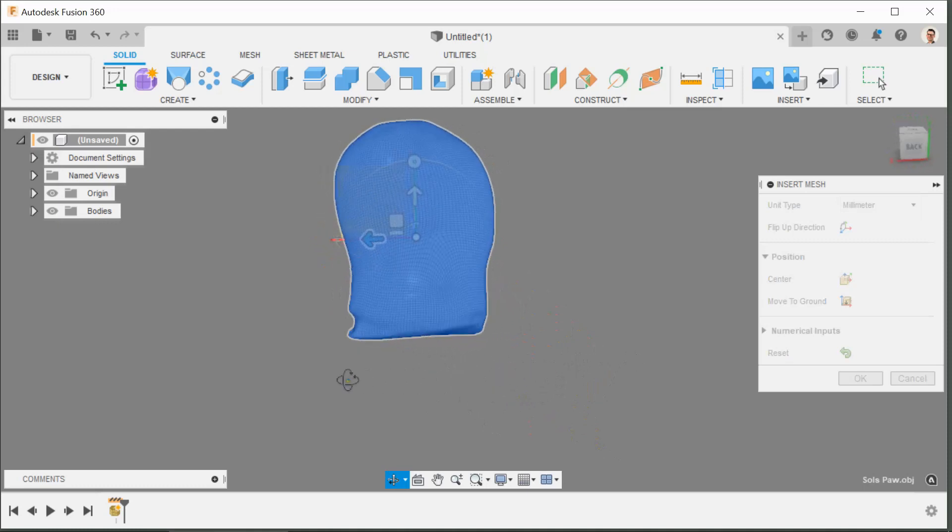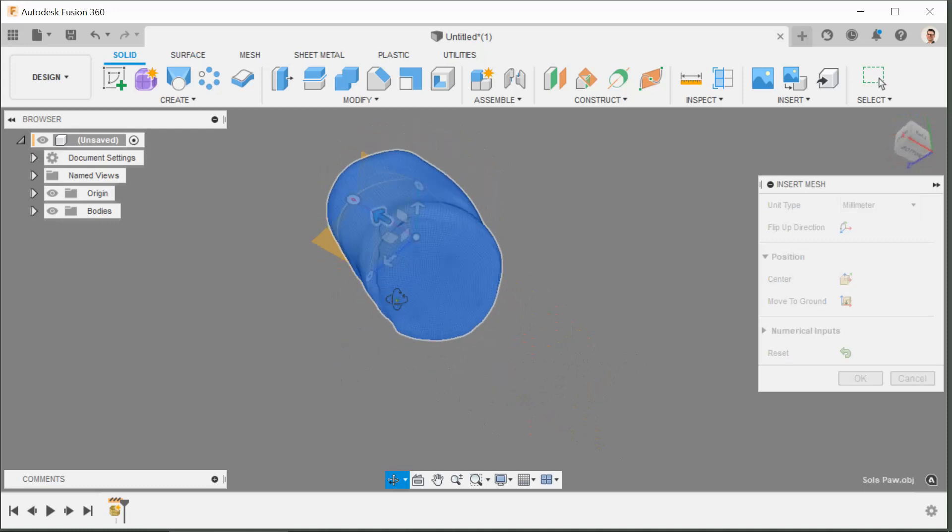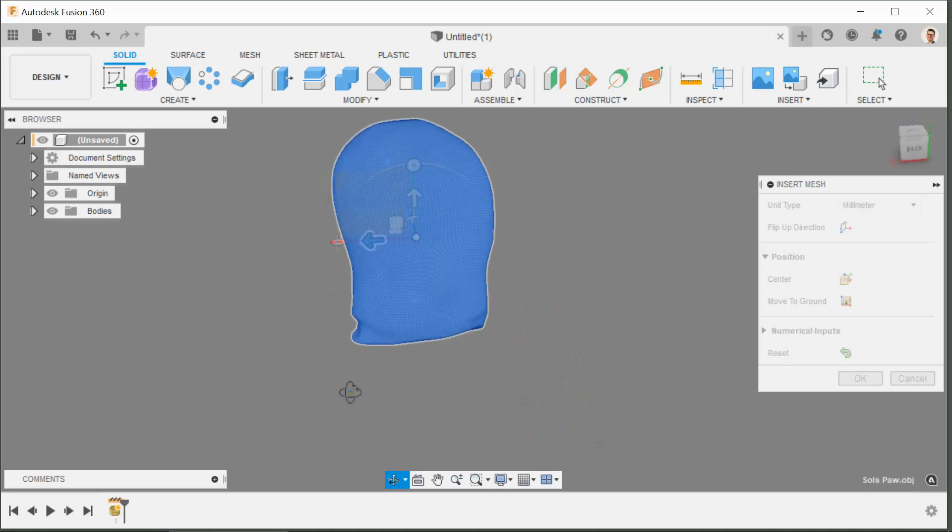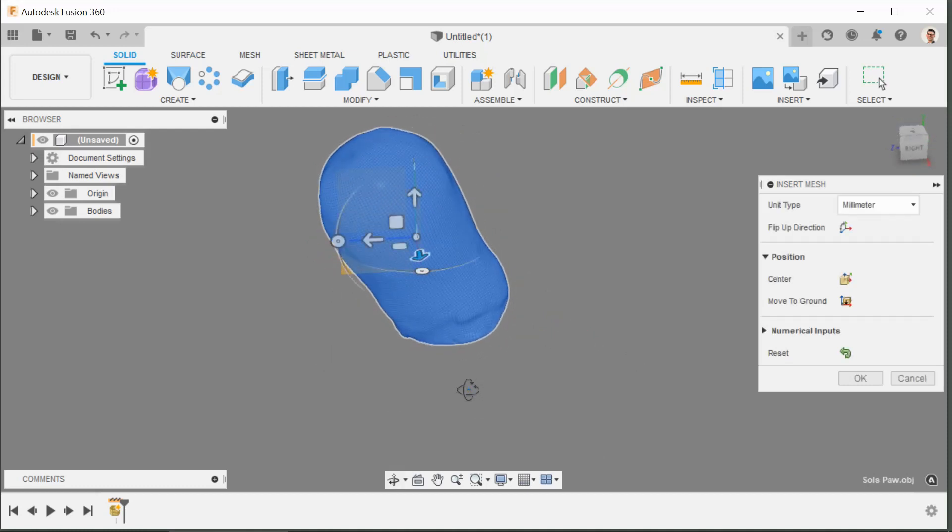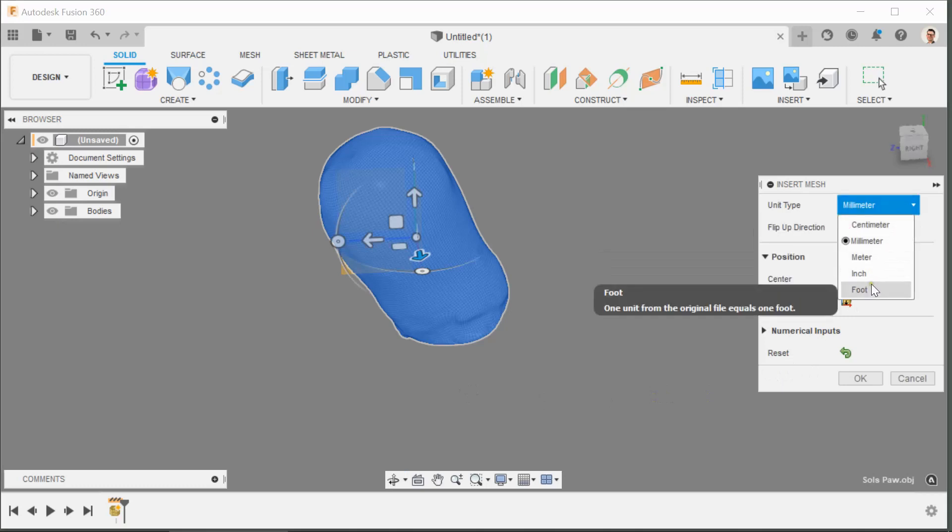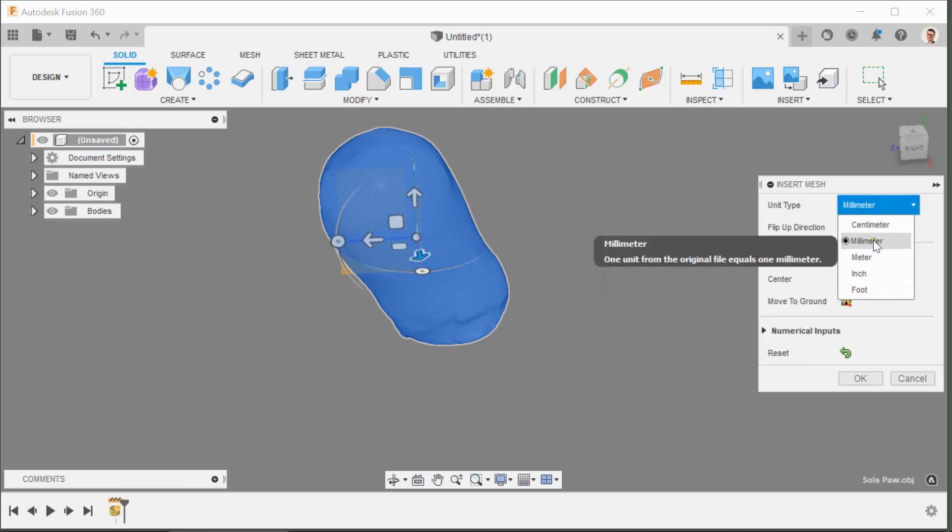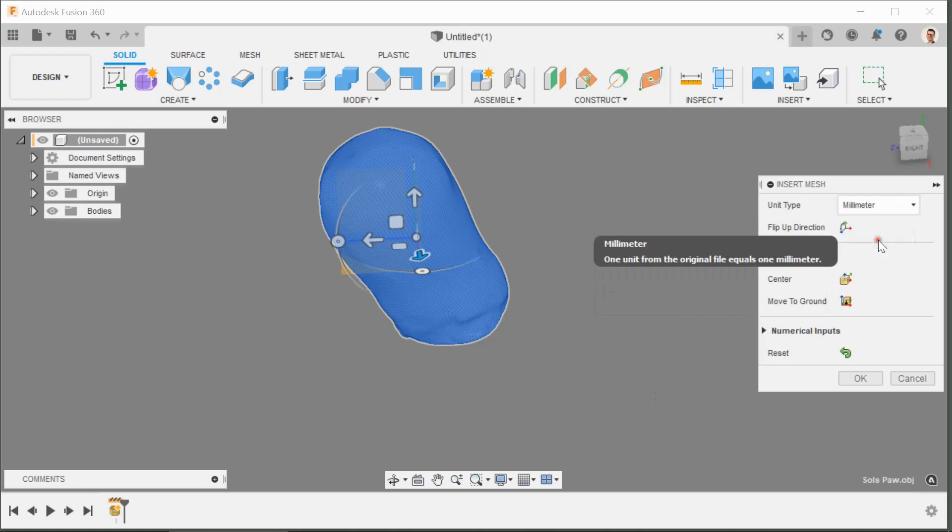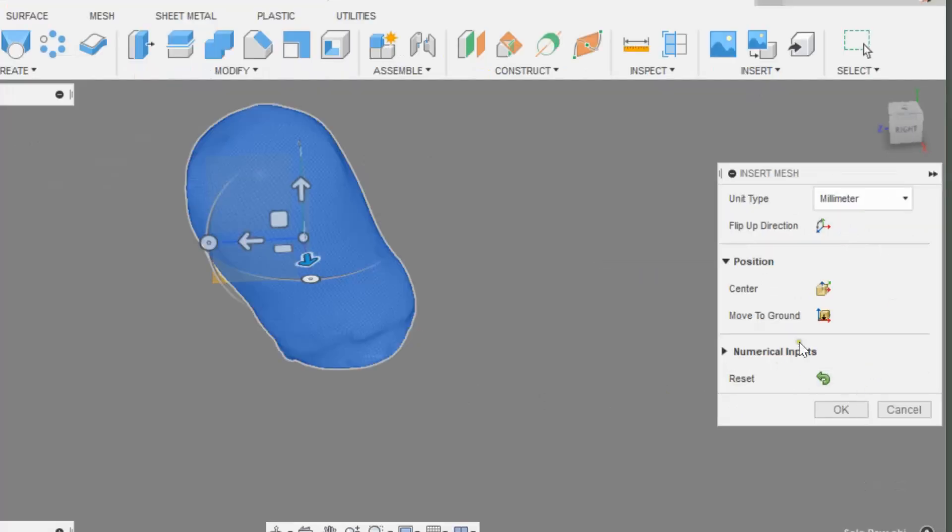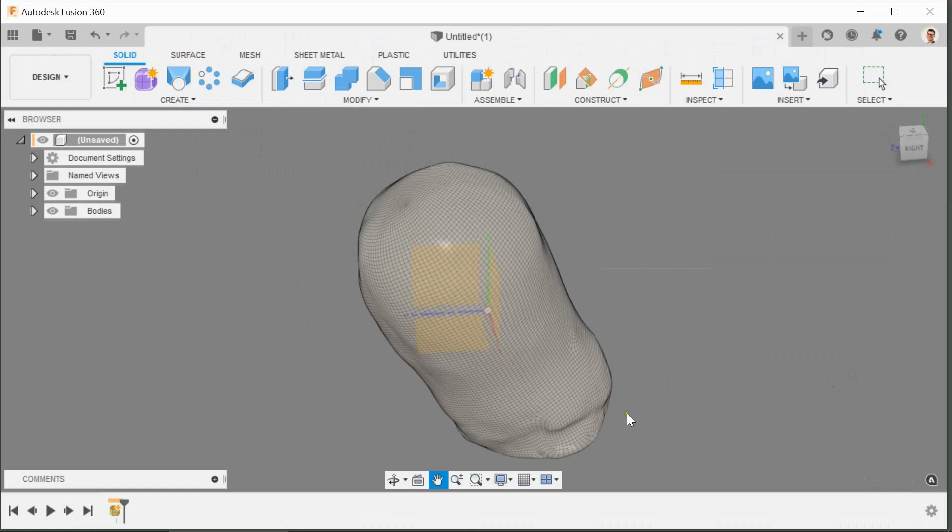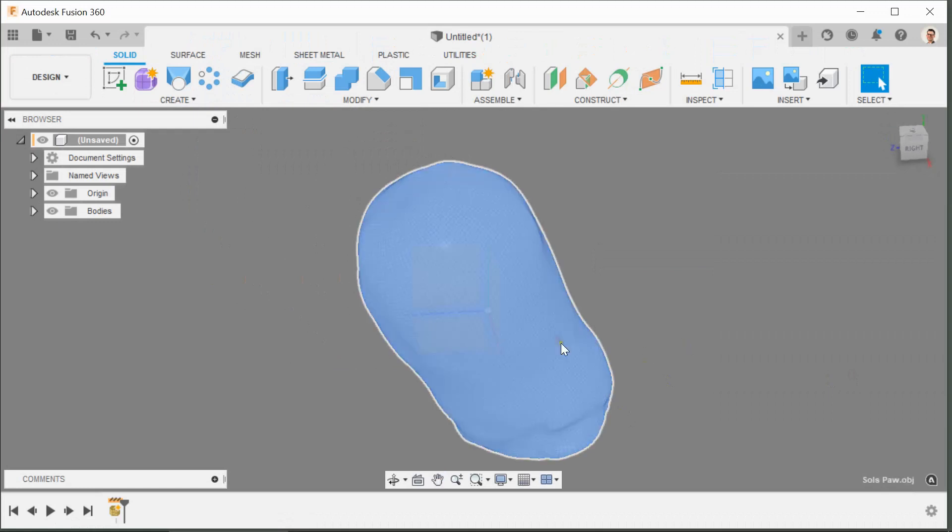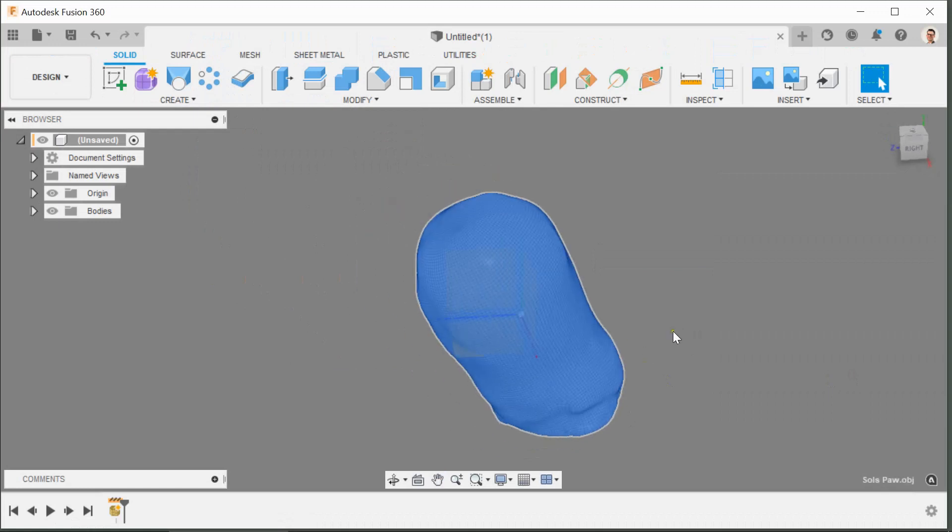It's a featureless object and we have to align it so it's going to be quite fun, bear with me. It's a hell of a challenge. Last thing to mention is the millimeters setting. You can have all sorts of different settings on here. This scan was taken at the millimeter scale, make sure that you're set to millimeters and that's it, just okay.